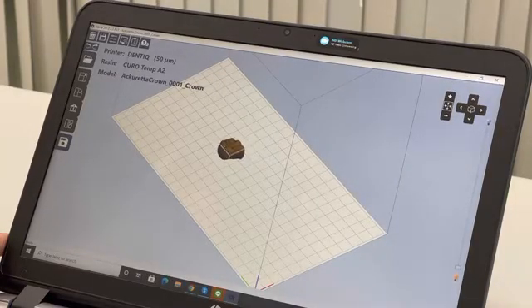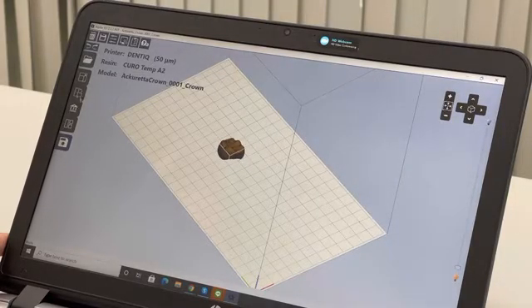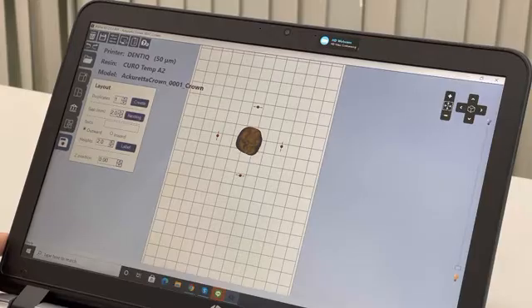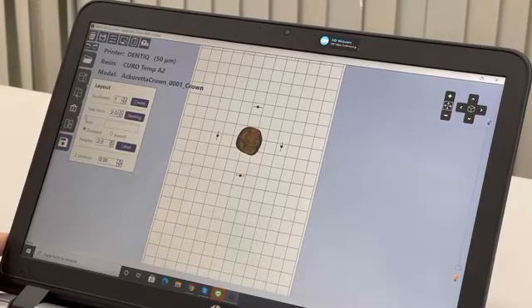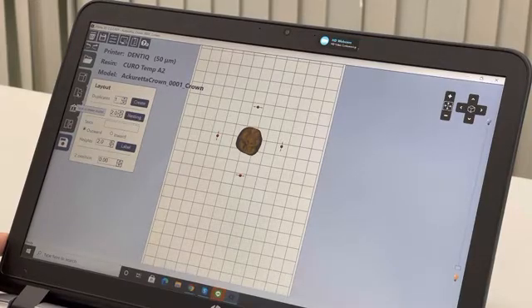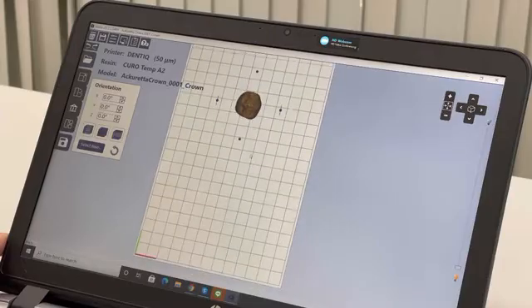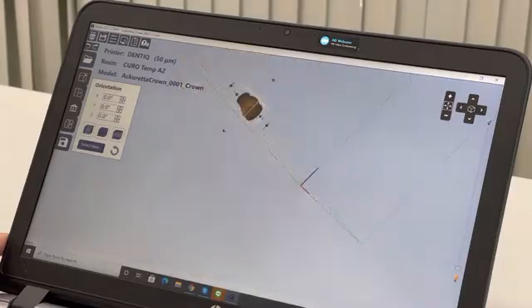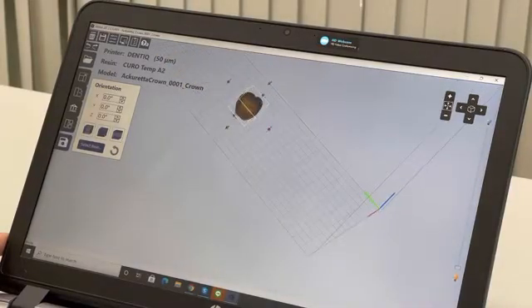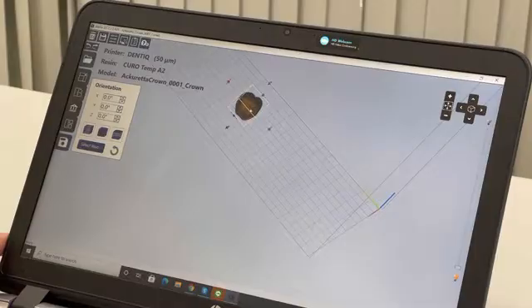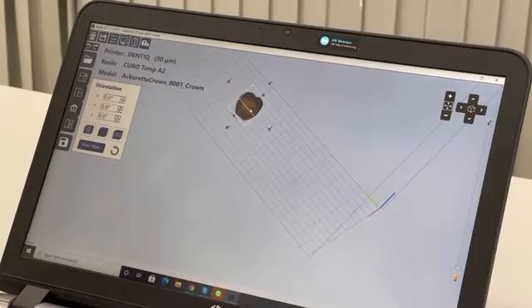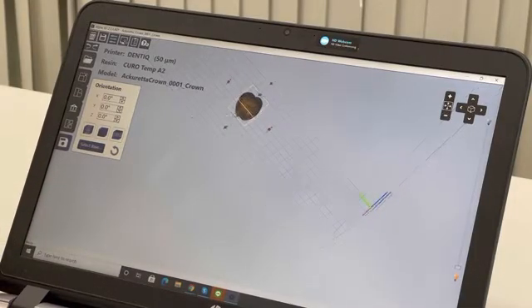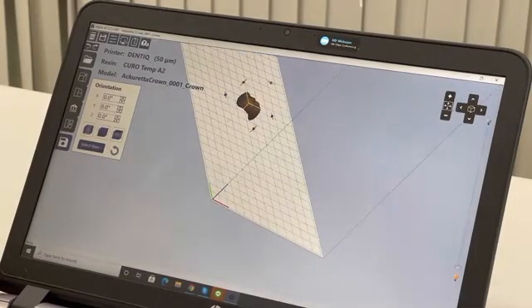I can see the layout is okay. Then I can change the orientation. The most important part here is this part because it's the one that will go into the mouth, so we want to change the orientation.